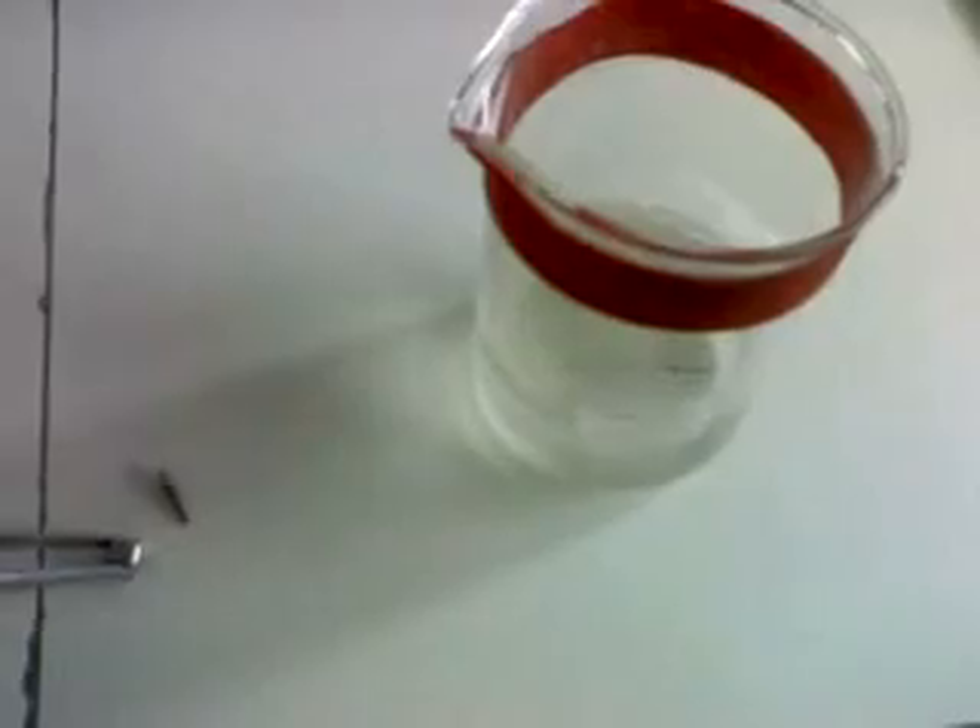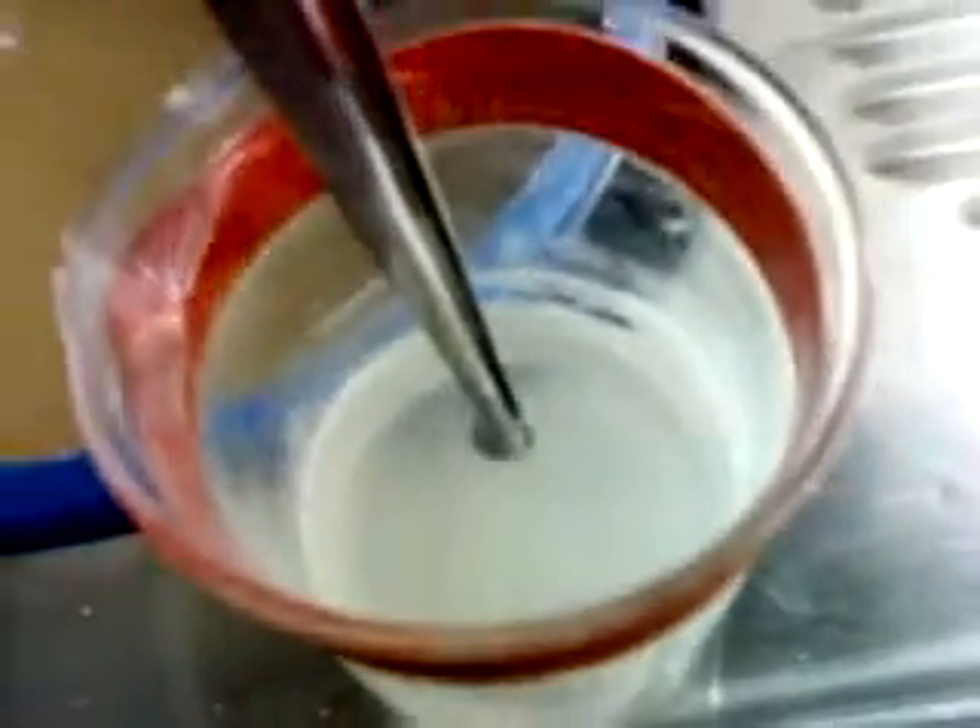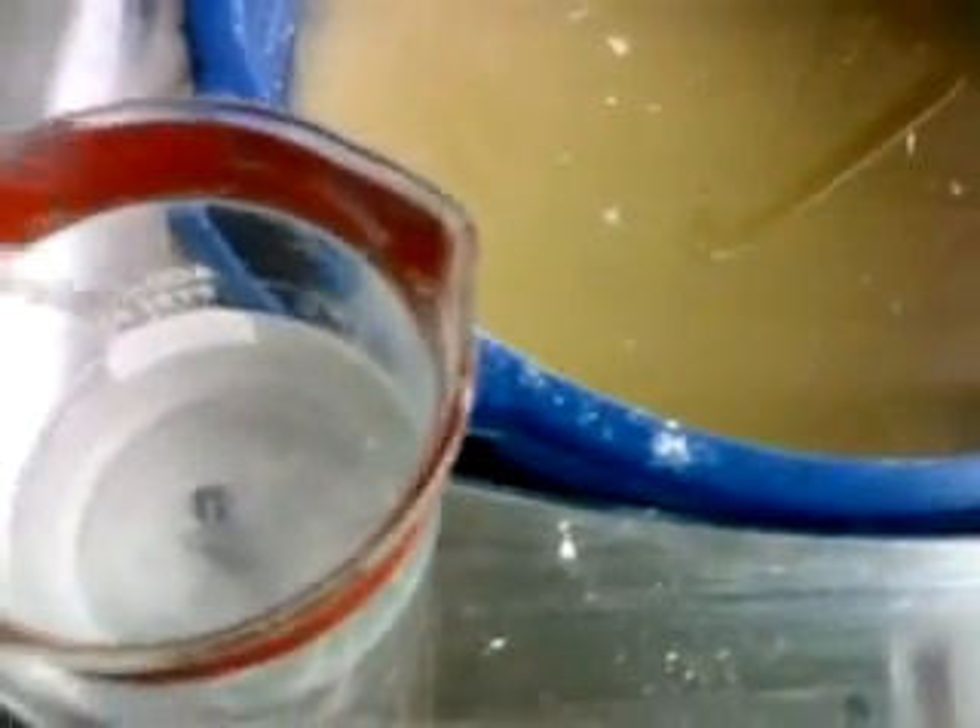My posts now go inside the liquid in my beaker and into the ultrasonic, which is set to about 3 minutes of ultrasonic cleaning. First, inside beaker number 1 with ammonia, and then beaker number 2 with distilled water. After dealing with the ammonia, we put the post inside the distilled water and run the ultrasonic for another 3 minutes.